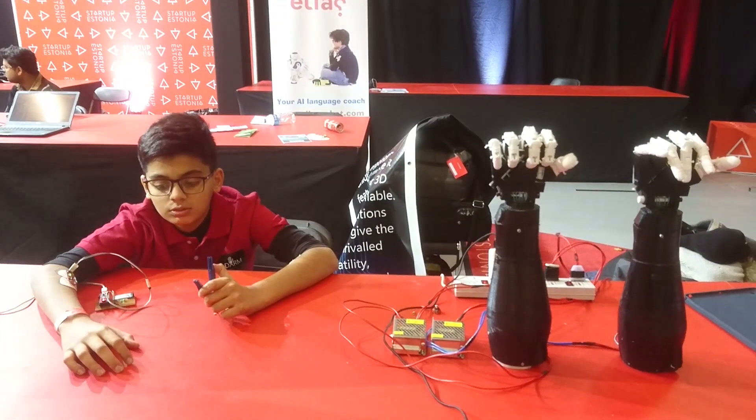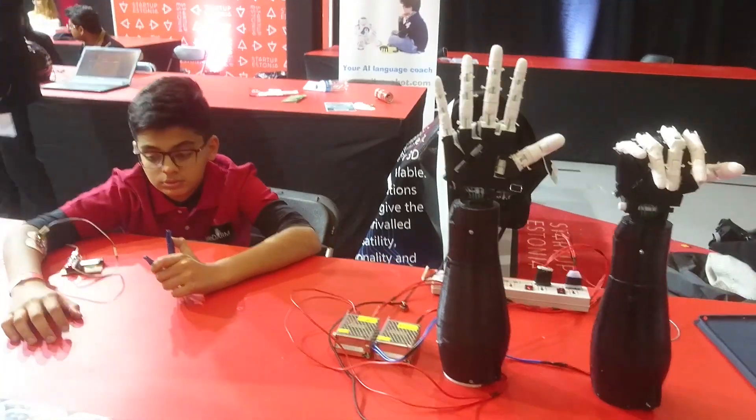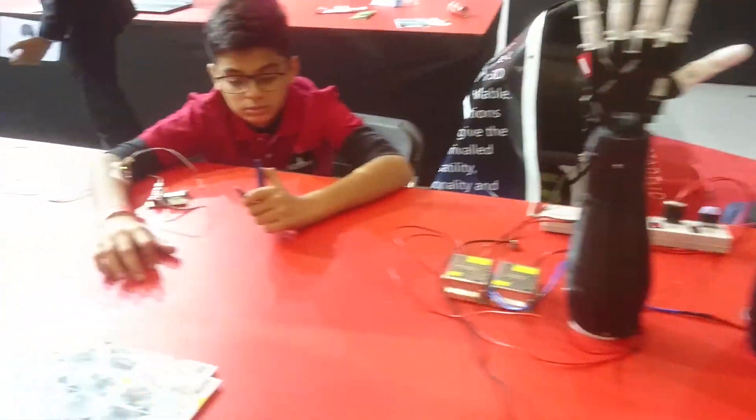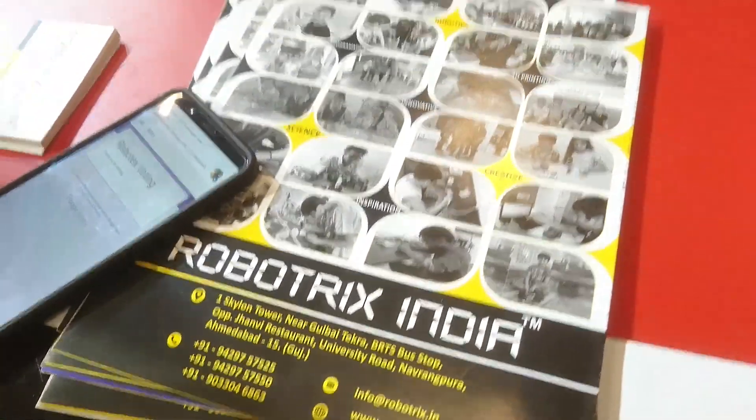He's just thinking, and it's working — can you see? Yes! So this is our product. Handicapped people can get more abilities. Something is better than nothing.